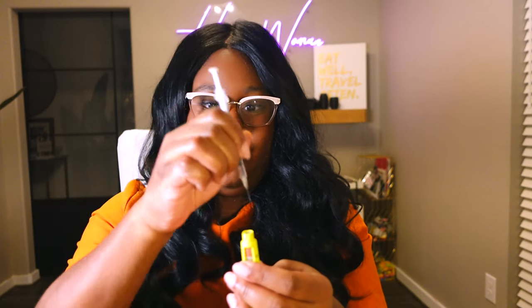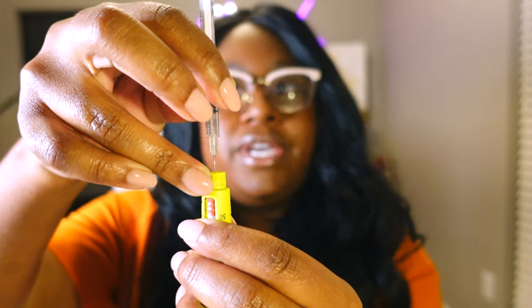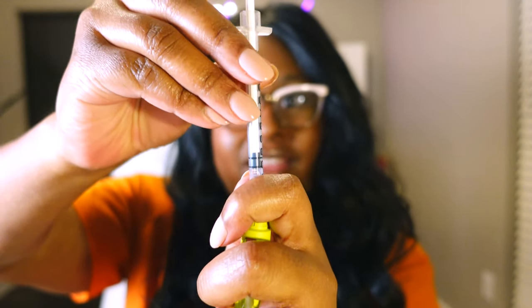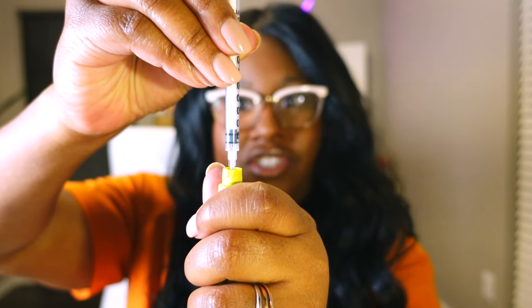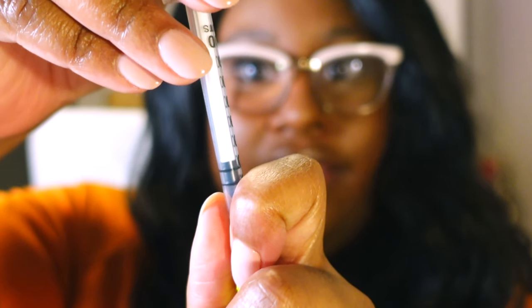Same type of approach here, but we're just using an insulin pen to draw it out of. So I pulled the plunger to 20, and then what I'm going to do is stick it in the top. You can also wipe this off with a sterile alcohol pad. Then what you do here is stick this in the top and draw out the insulin. We'll push the air into the insulin pen, and 20 units might have been too much, but we're going to see what we can pull out. And then we draw back to draw out any insulin.